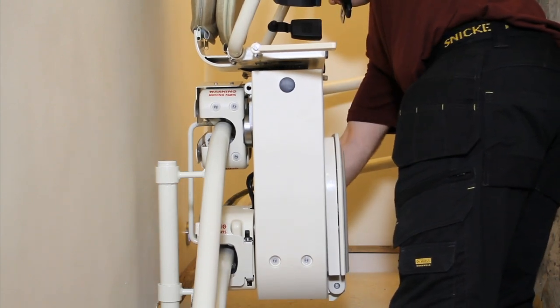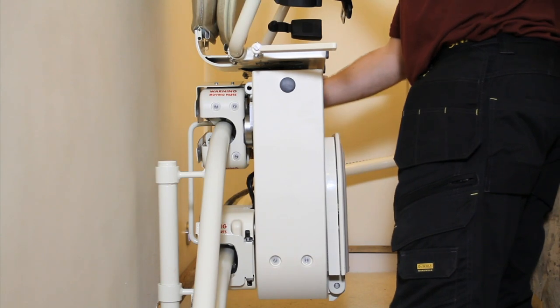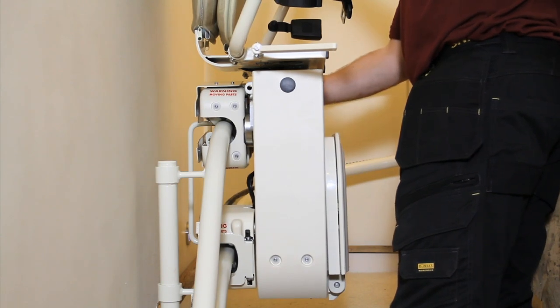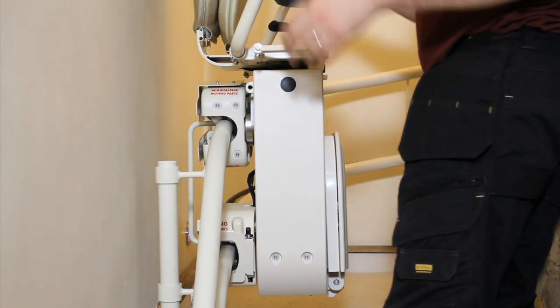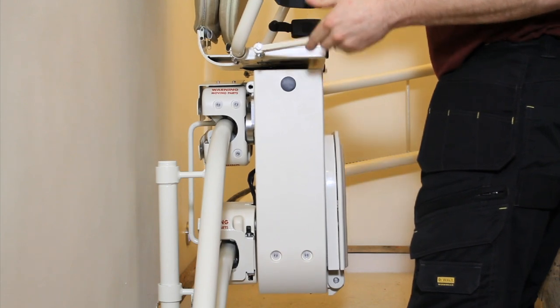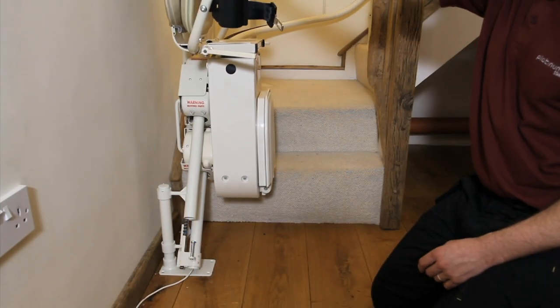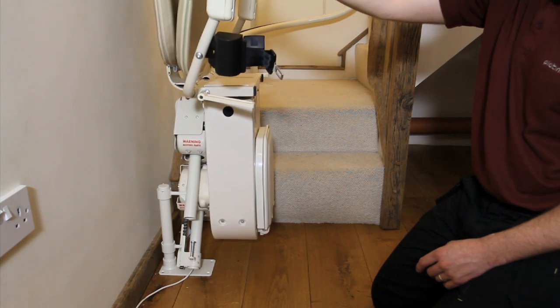Ensure that the safety circuit switches are working by checking that the swivel safety switch activates when swivelled. Also check that the key switch safety feature is working. Finally, test the overrun switch by pushing the charge pin in to its maximum.